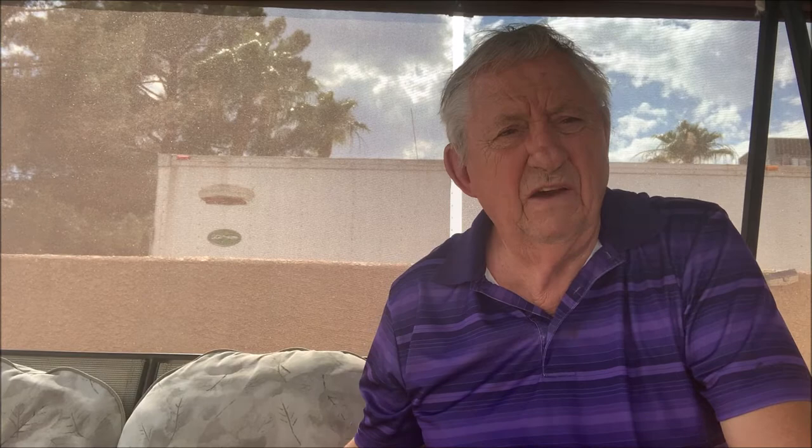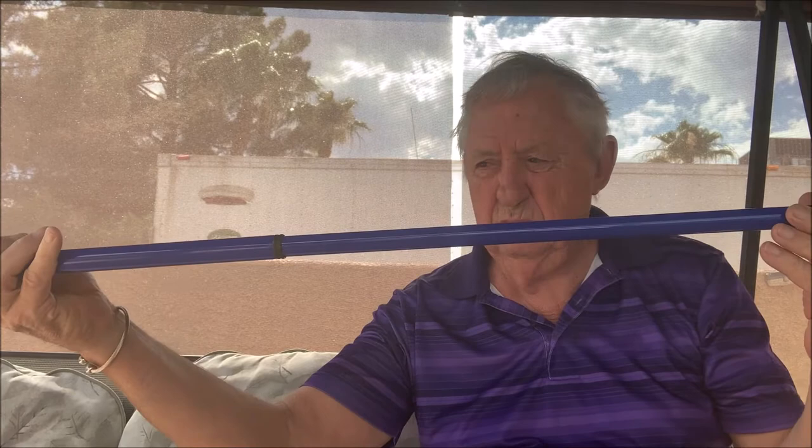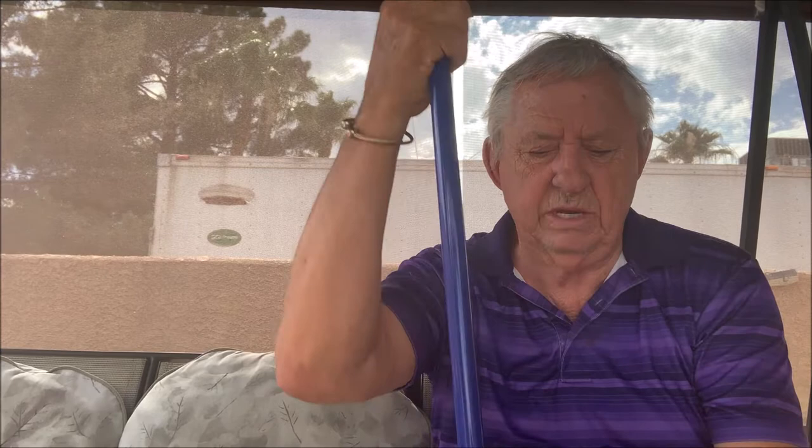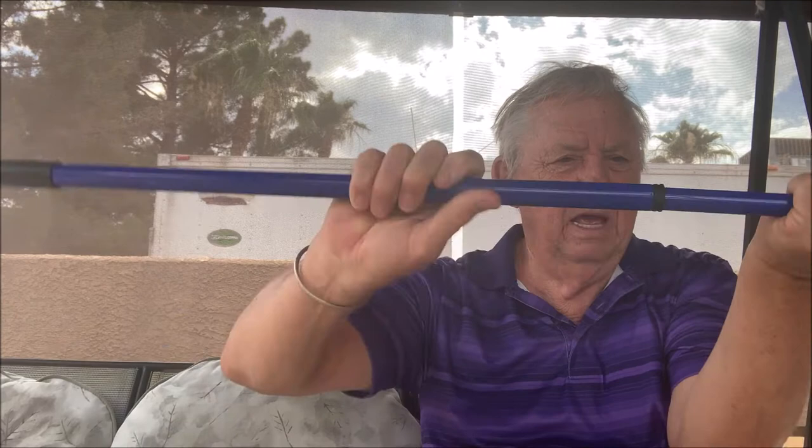I'm offering a solution today. I purchased a bunch of poles on a government auction site and they look relatively simple. They're 27 inches from end to end when they're enclosed, but with a little twist they slide open to 47 inches from this end to this end. So that's a perfect height for a walking stick. By tightening them up, they're firmly locked into place. I can put my entire weight on this and it doesn't slip — that's 250 pounds of pressure and it held tightly. By just twisting backwards, it loosens up and goes back to 27 inches. Perfect for carrying.